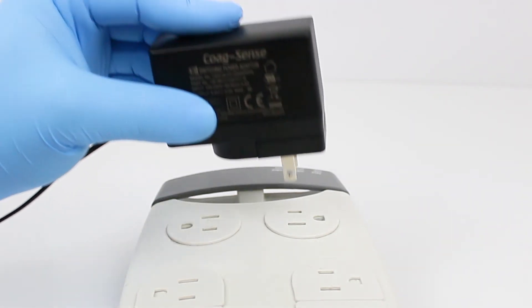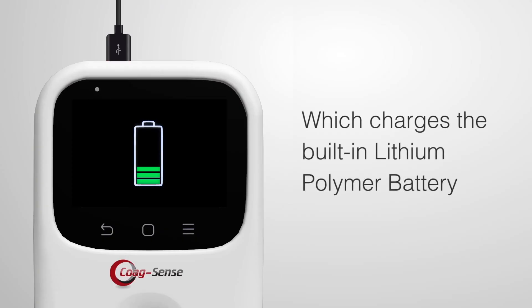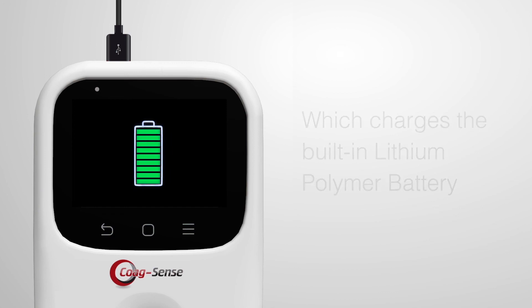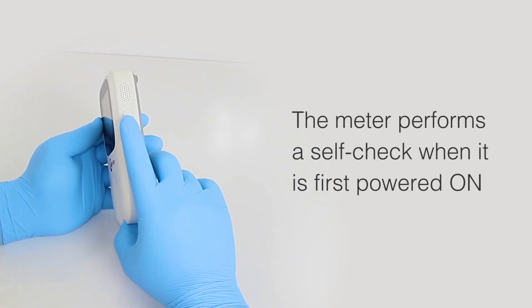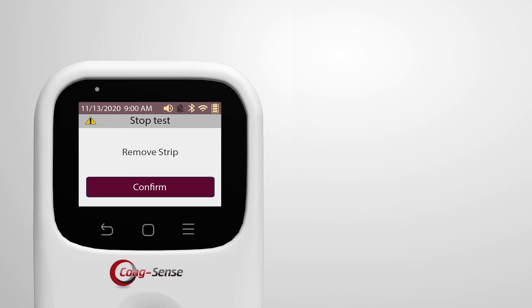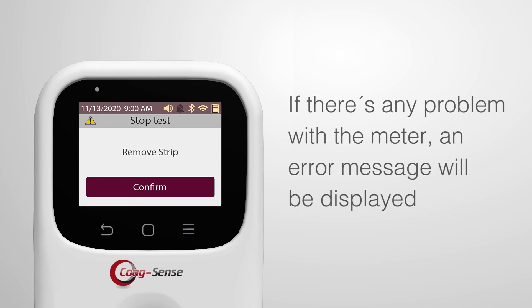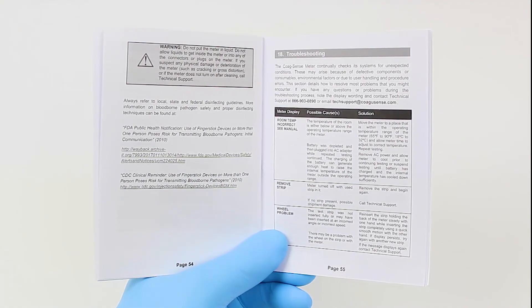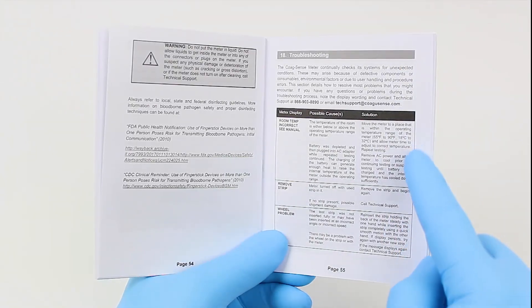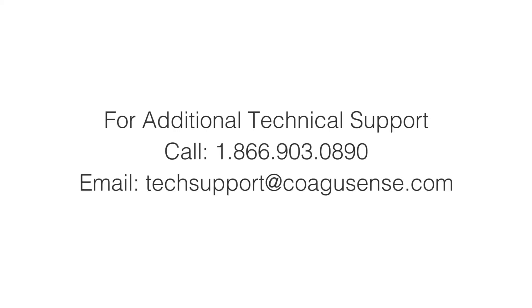The meter can be operated with the power adapter provided in the kit, which charges the built-in rechargeable lithium polymer battery. The meter performs a self-test when first powered on; if there is any problem, an error message will be displayed. For a complete list of error messages and troubleshooting, please refer to the troubleshooting section in the user's manual or contact technical support.